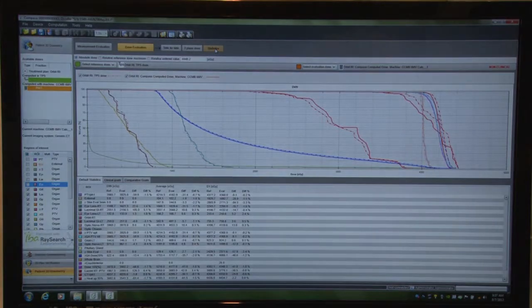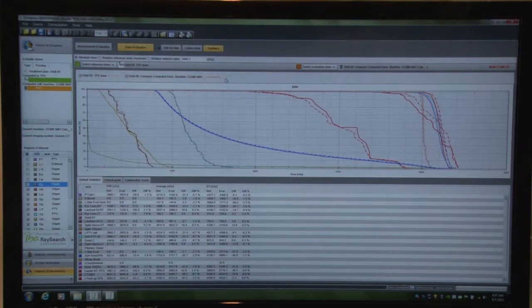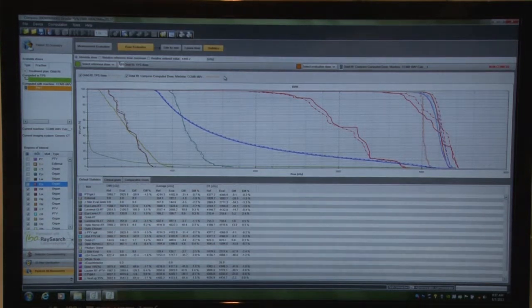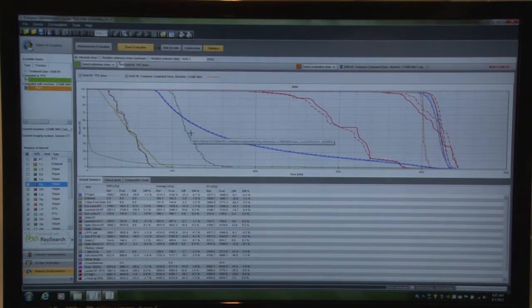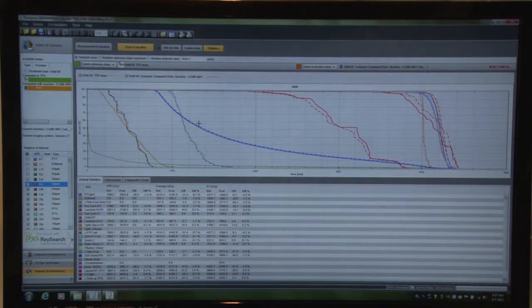One other specific component in the software is the statistics page where you get detailed information, pass fail rates related to your prescriptions. In your particular institution, you can create specific protocols that relate to the physician desires, specific structural doses, passing rates, things like that. And in this statistics page, then you can see how the treatment planning system compares to our calculation measurement.